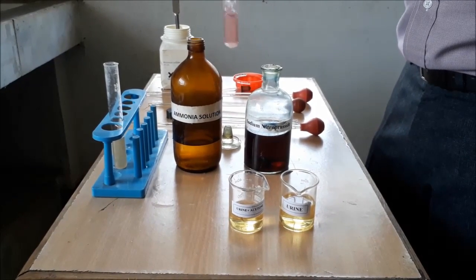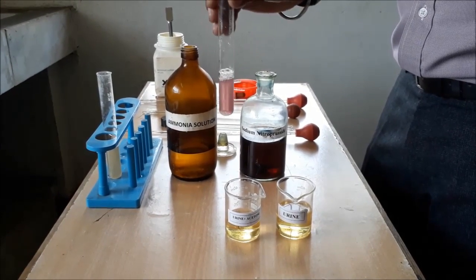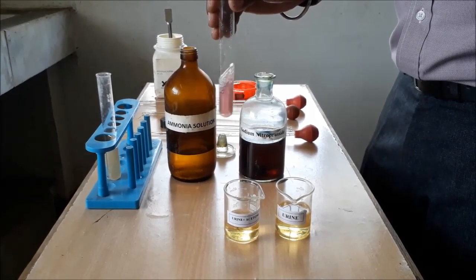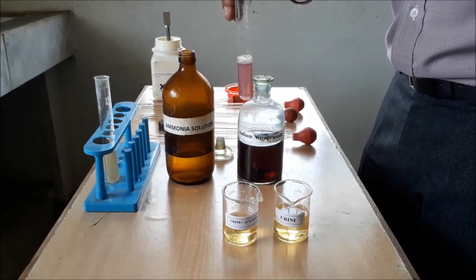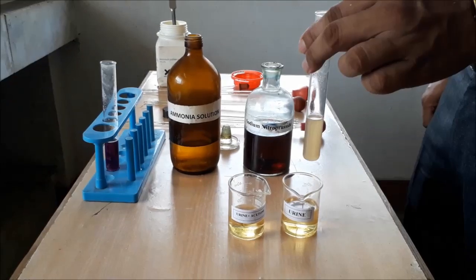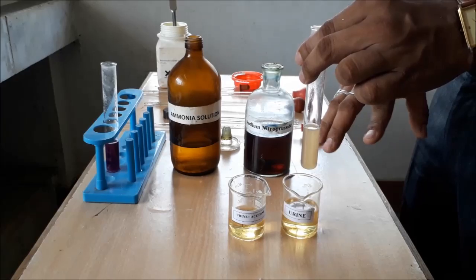And as you can see on the screen, we have shaked a little bit and it is starting to develop a permanganate color which is a clear indication of presence of ketone bodies in the given sample of urine. This test confirms the presence of ketone bodies in urine sample.